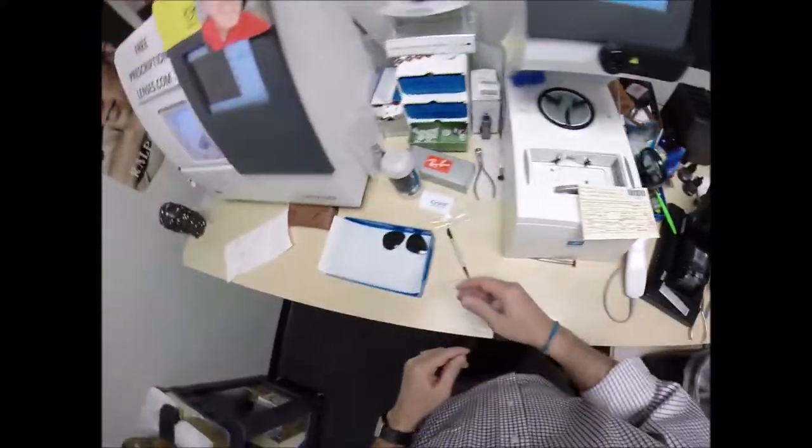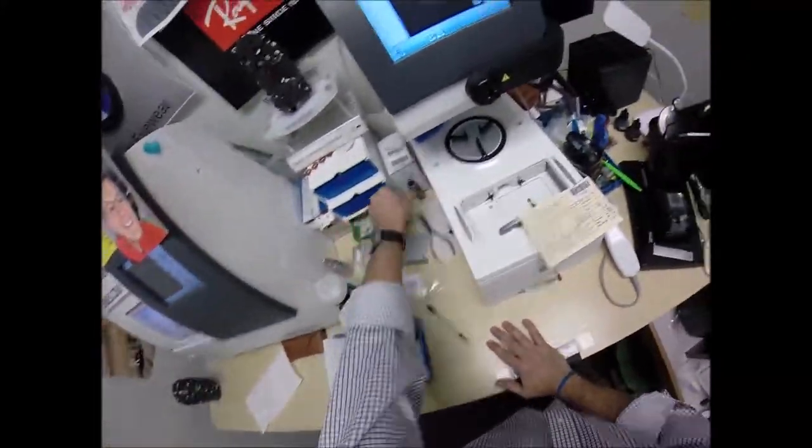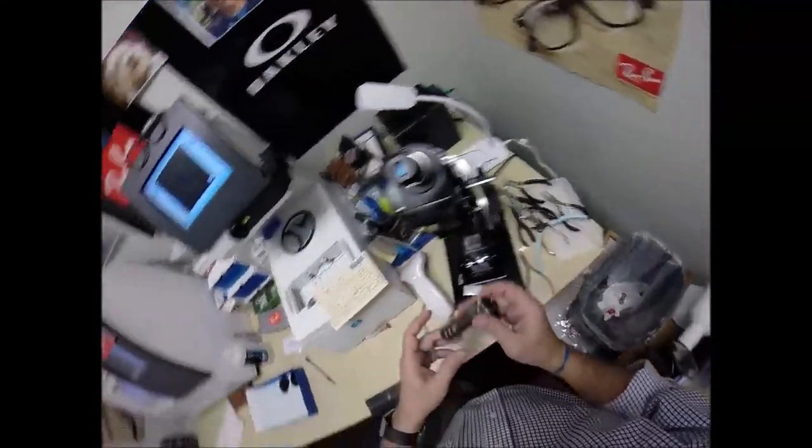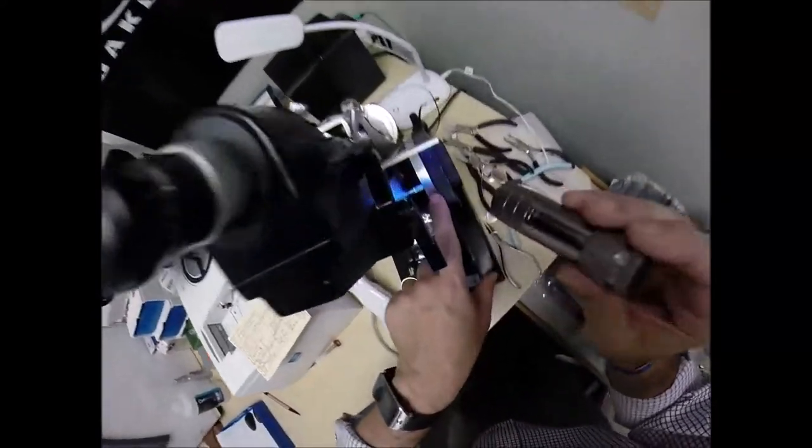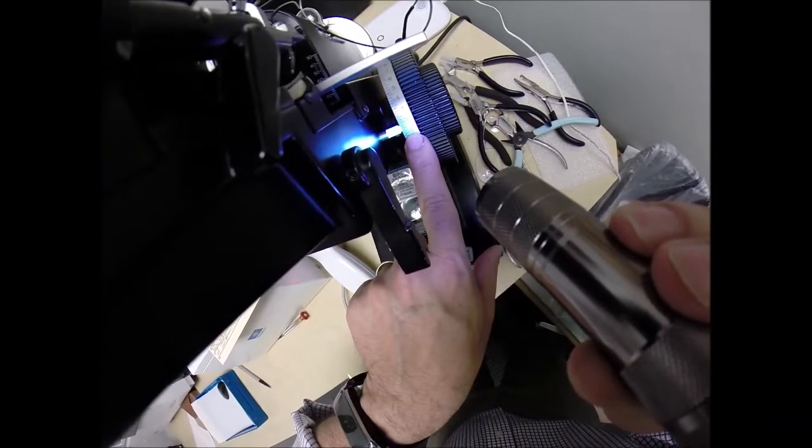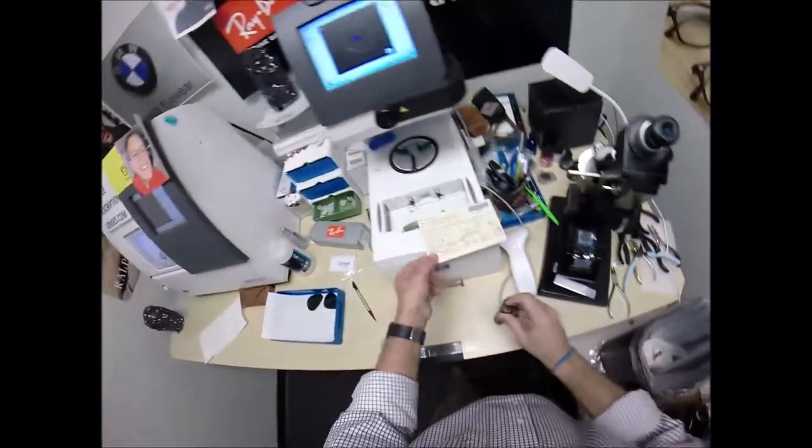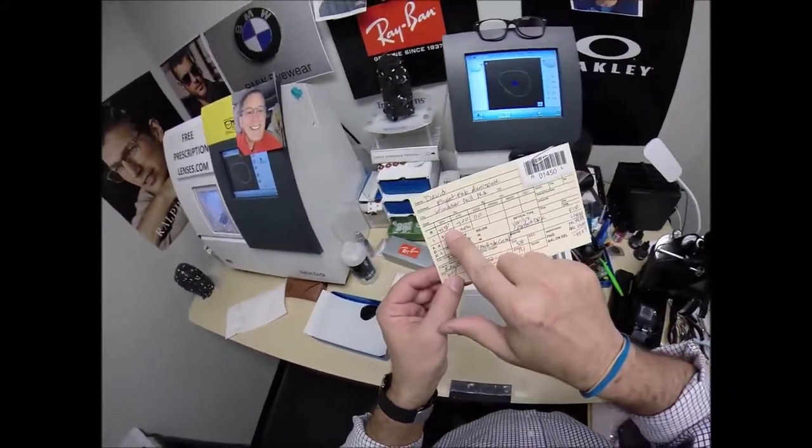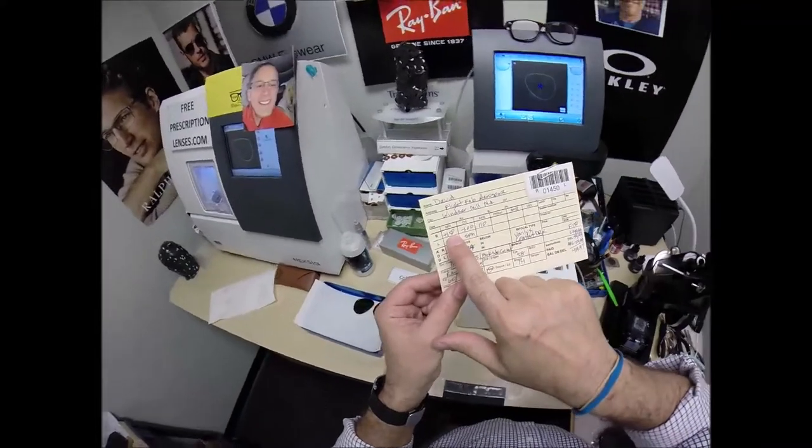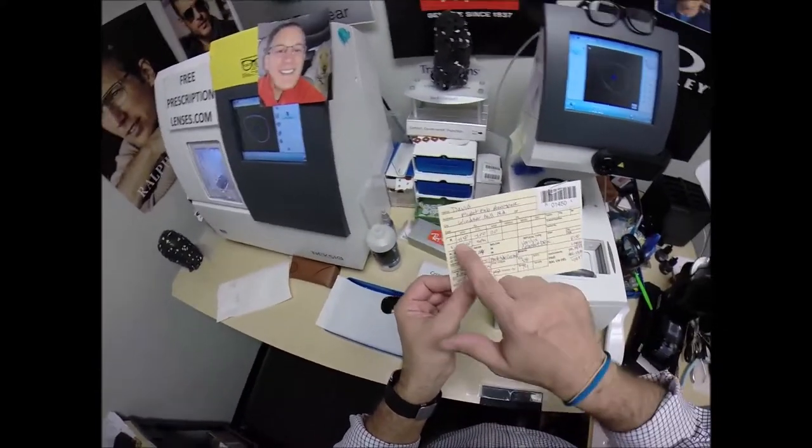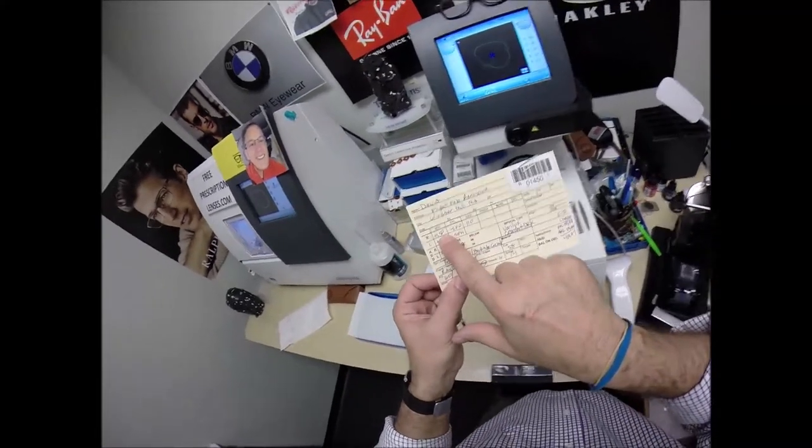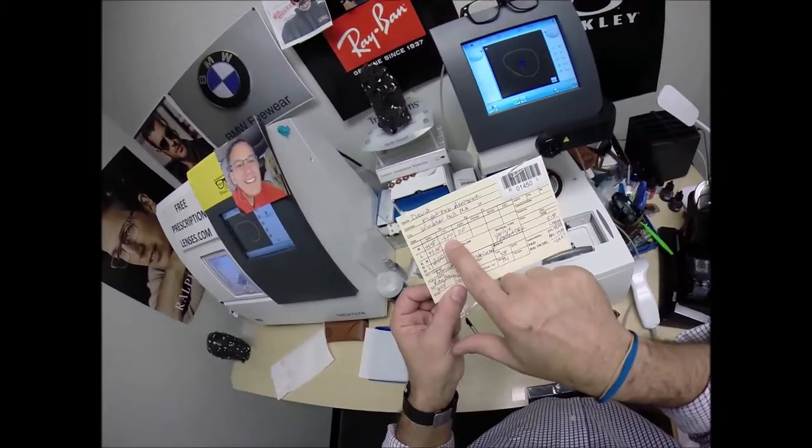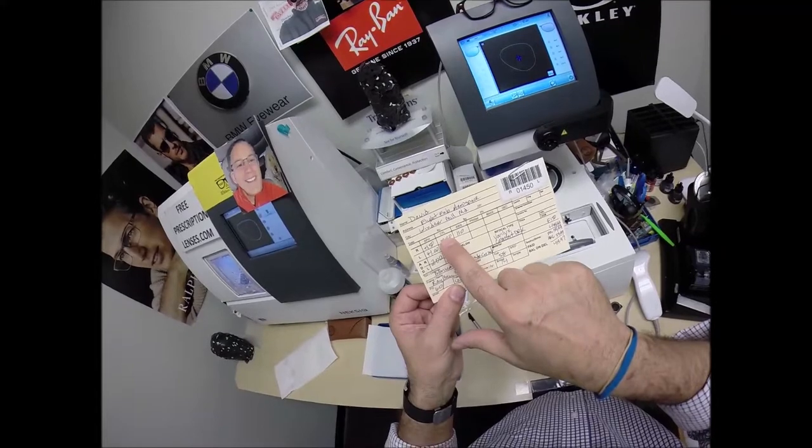Read the power and I'm getting to the point I can't find my flashlight. You know you're getting old when you need a flashlight to find a flashlight. I'm getting 150 exactly halfway between one and two. That's because you need six steps of correction to see far away. With your glasses off everything is much too small. When you put these on it will magnify six steps. Now once everything is the correct size you have four steps of astigmatism correction in your right eye only. You got none in your left. That's your good eye.